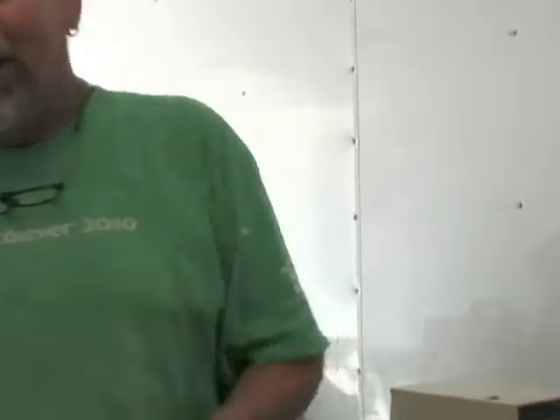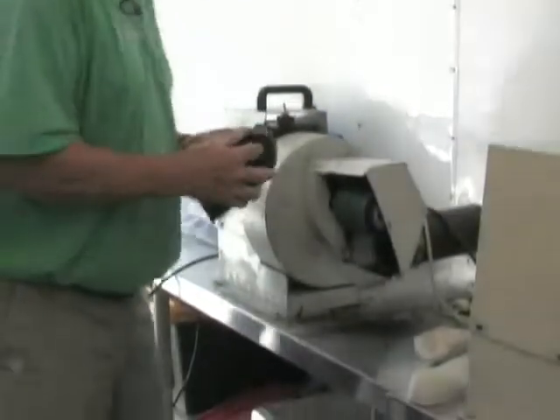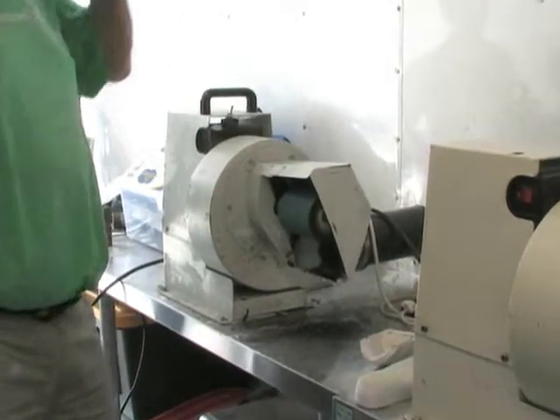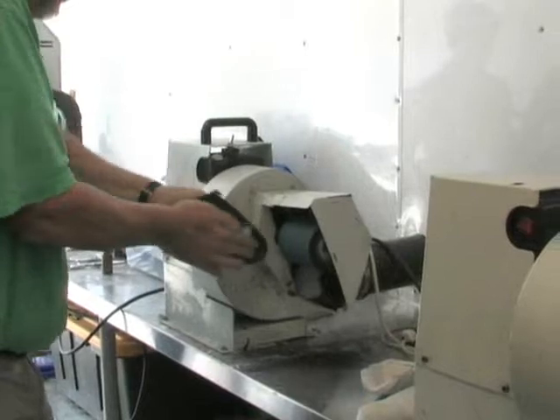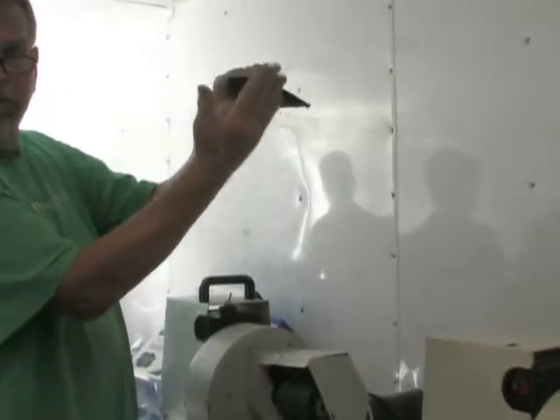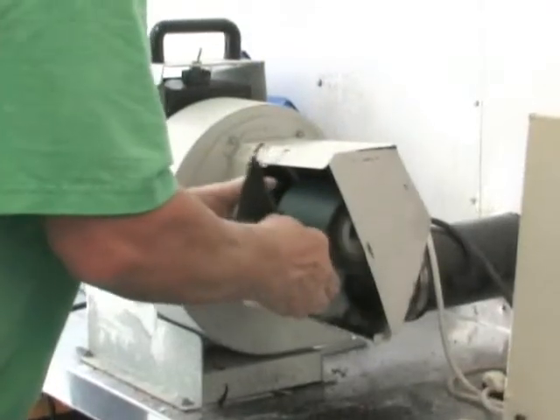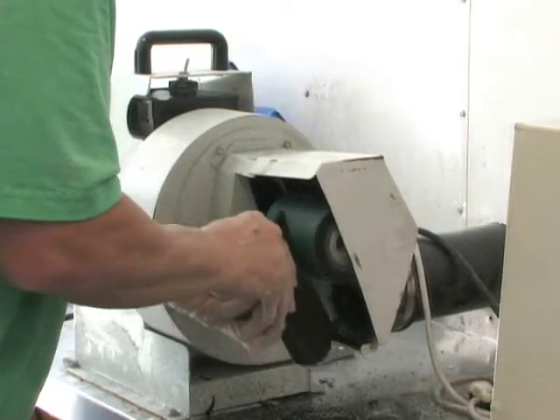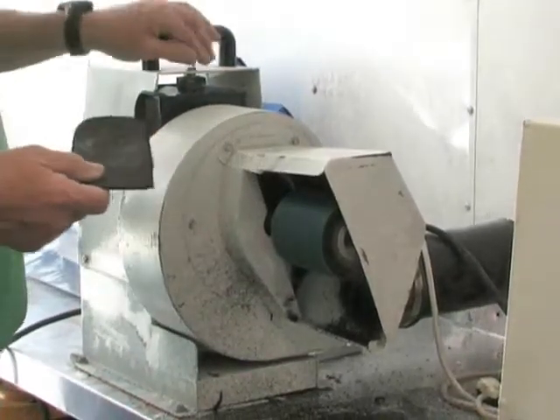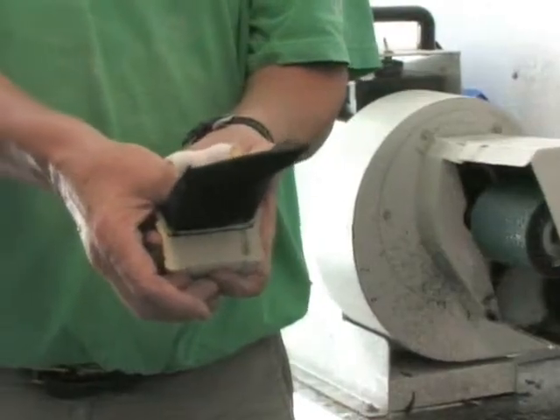I don't use this shoe to shape everybody's — Raymond's heel might be a little wider than this one. I come down here and turn to undercut at about a 10-degree angle — you can see me starting to undercut right here. I'll do the same thing all the way around. Does it fit into that heel cup a little bit better? Yes — because it's undercut. The fit is good.